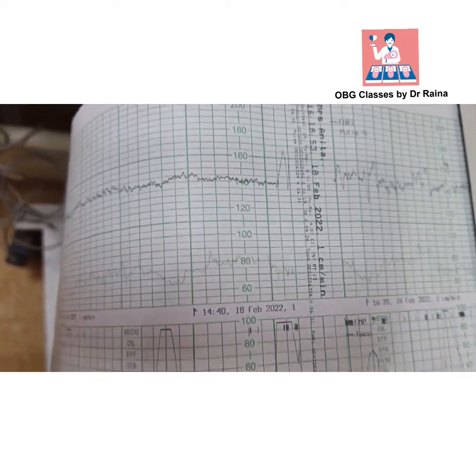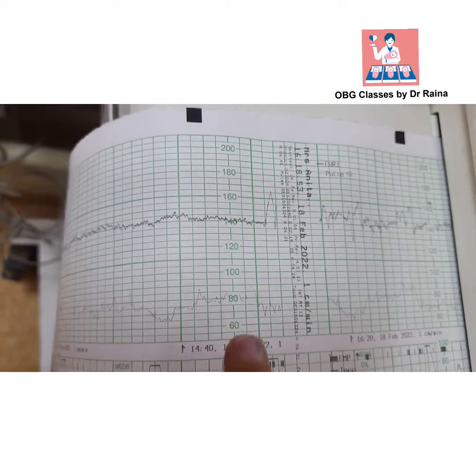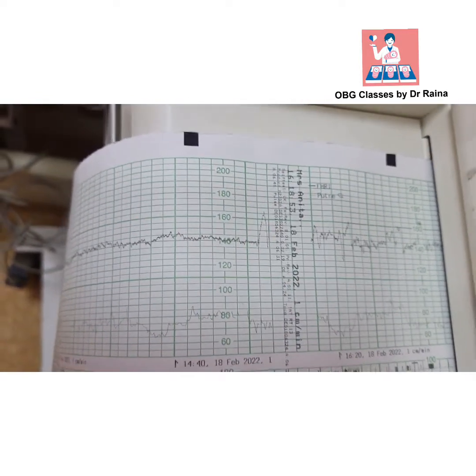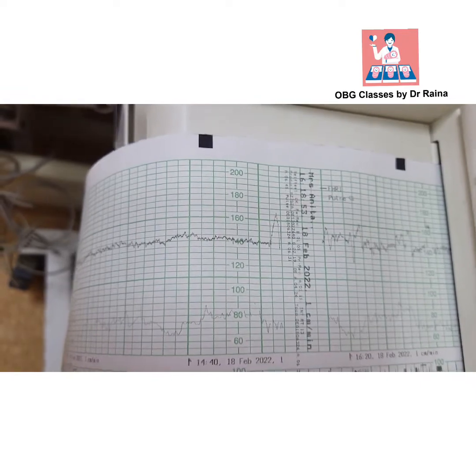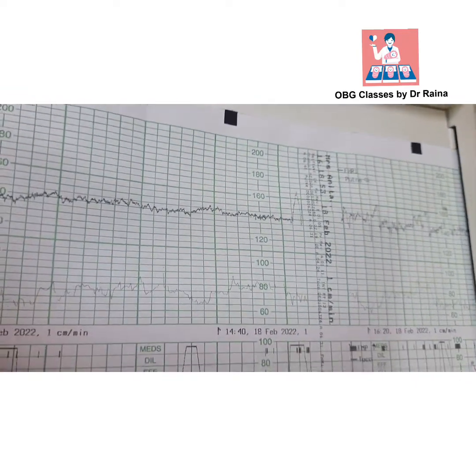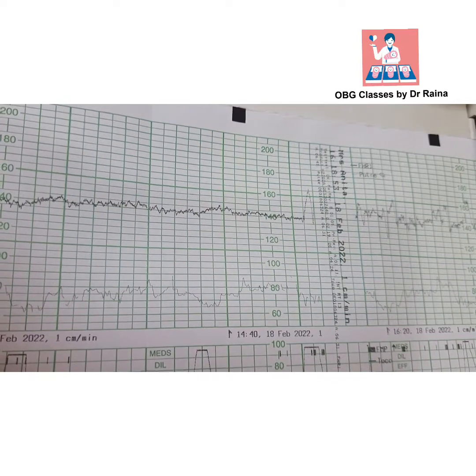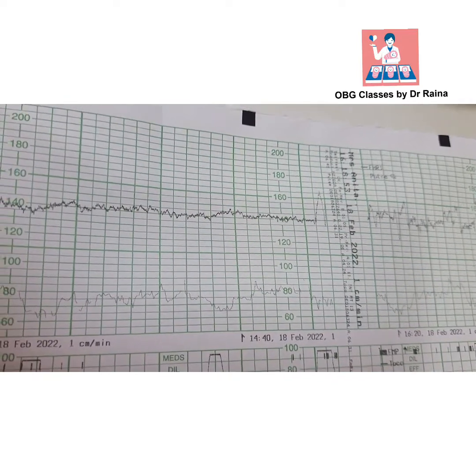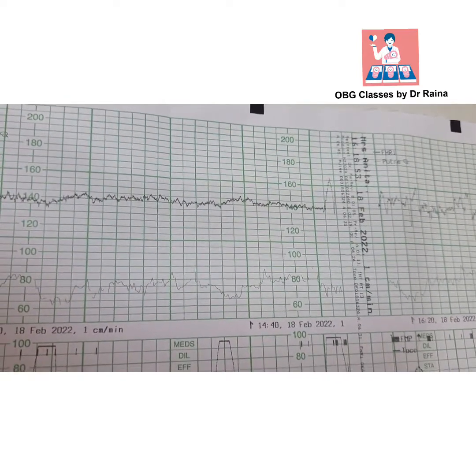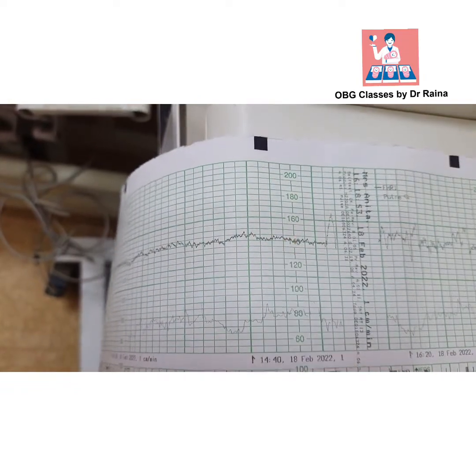If we look carefully, the x-axis is the time and the y-axis is the fetal heart rate. The first thing we see is the baseline, and the normal baseline is between 120 to 160 beats per minute. You can see here it is around 140 beats per minute.